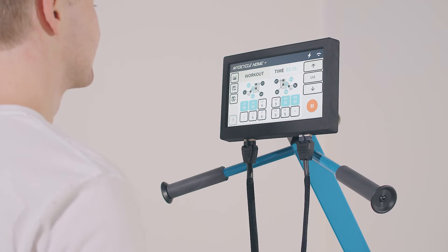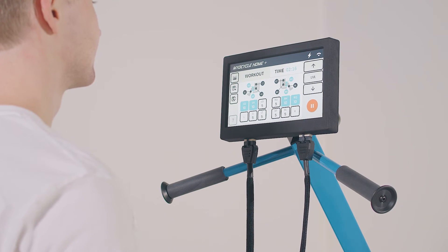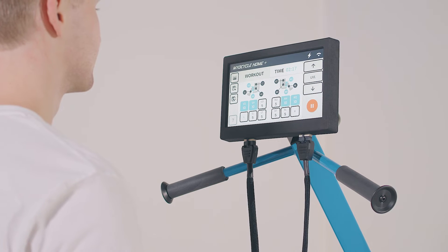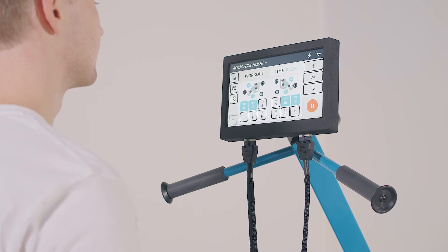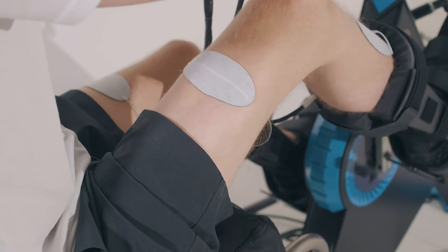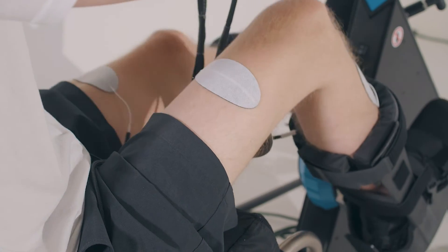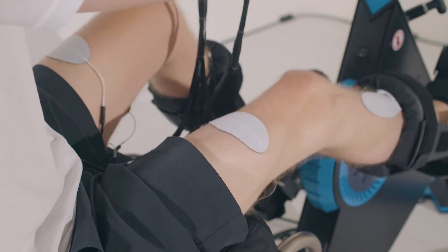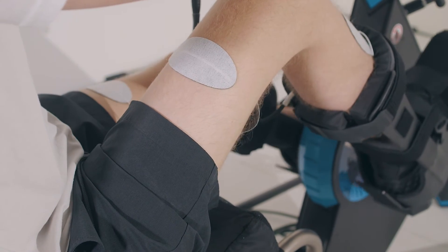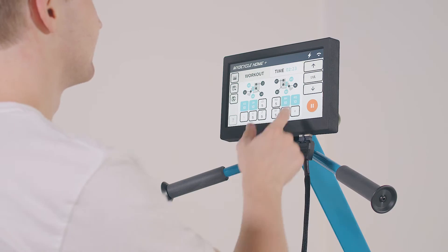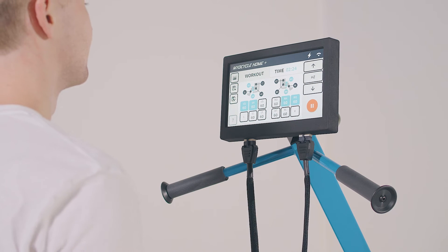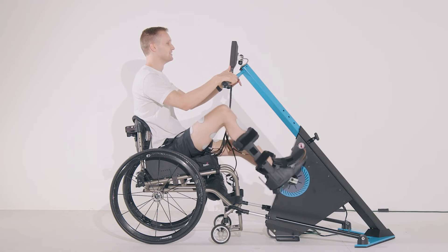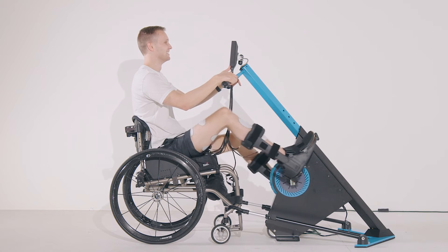The stimulation level ranges from 1 to 50. To start, slowly increase the stimulation level and watch how your muscles react. More stimulation means stronger contractions, so use the highest stimulation level that you can. The frequency will also affect the stimulation intensity, but can also affect how the stimulation feels. Some people find lower frequencies more comfortable, while others prefer higher frequencies.